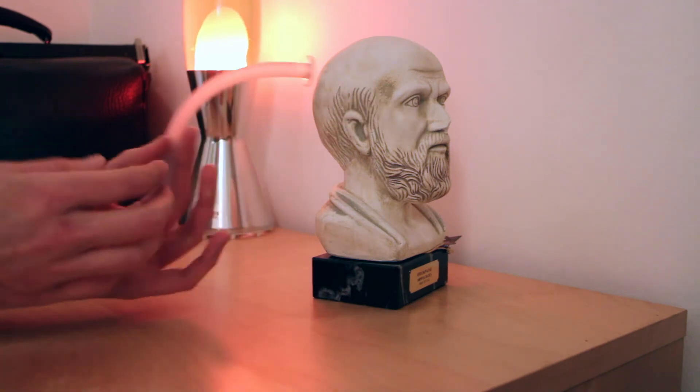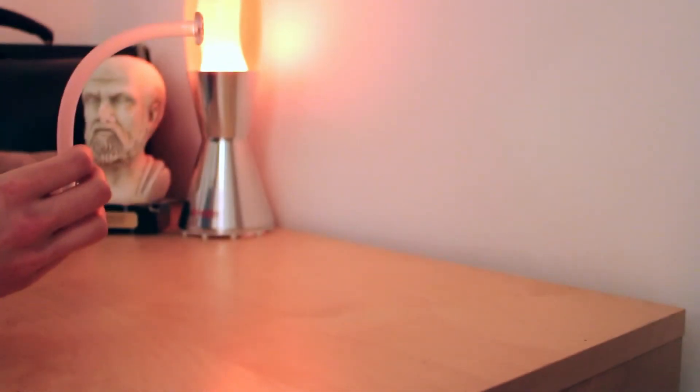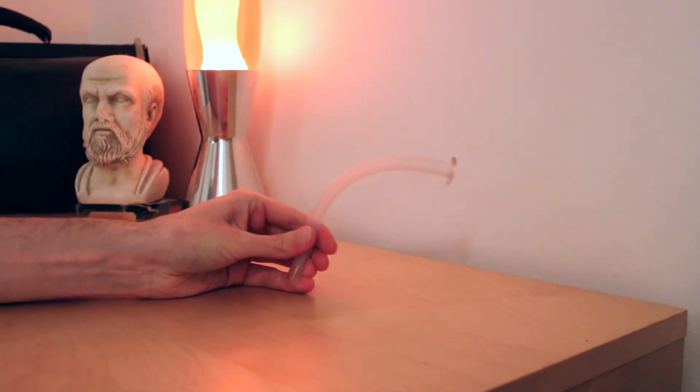I have seen this device used in emergency settings in patients who are very unwell and critically ill. In particular, they have either respiratory arrest or respiratory depression with a reduced level of consciousness.